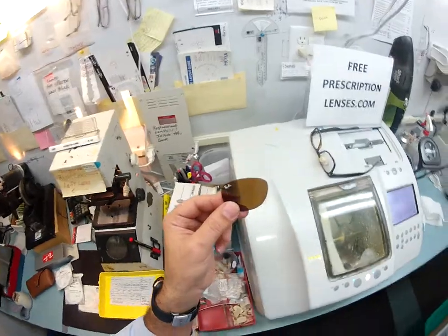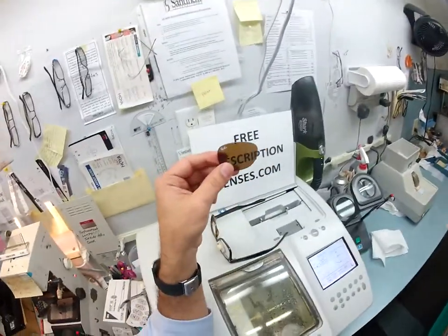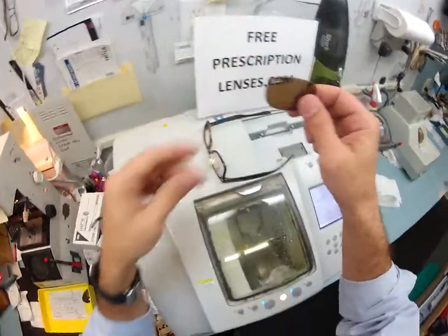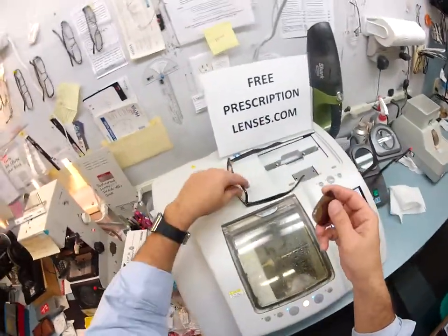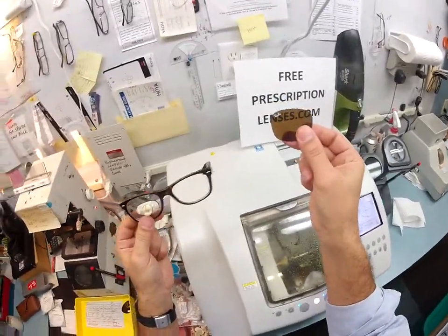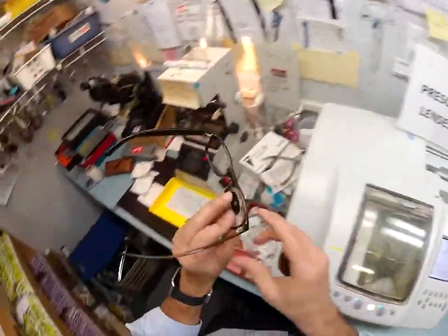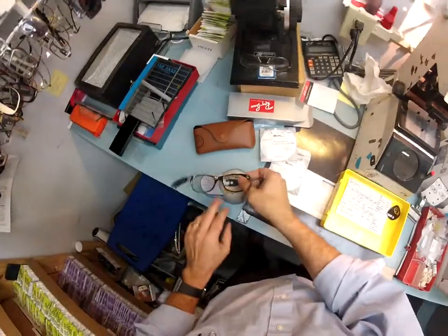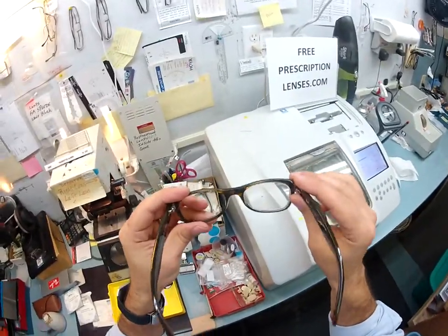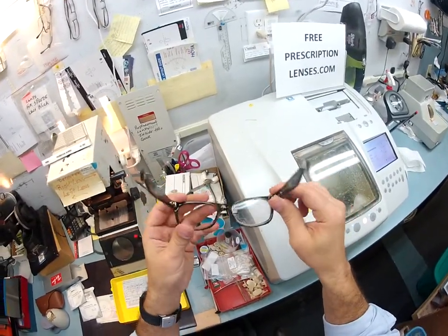Now, this is why I left the original lenses out. I emailed you and asked if you wore contacts — you said you were trying to get away from them for the time being. I have tricks up my sleeve: I'm gonna go ahead and include these original lenses with your purchase. You're getting a gray transition lens, but in case you want to change things up, I have a brown tinted lens that came out of the frame. Let me take off the block — the little sticky pad.